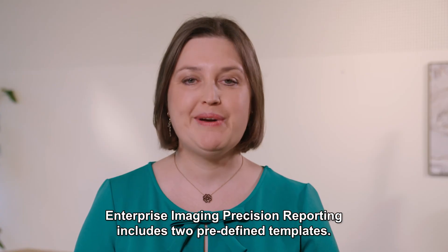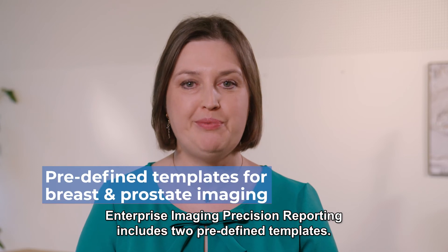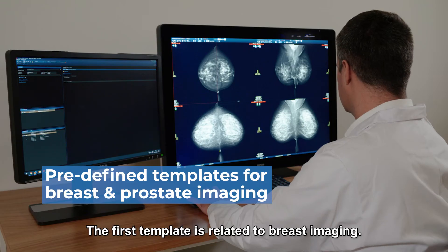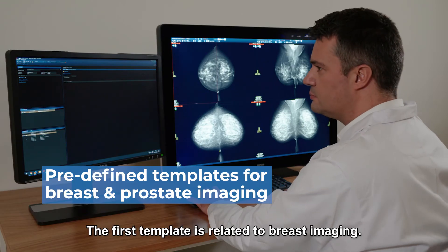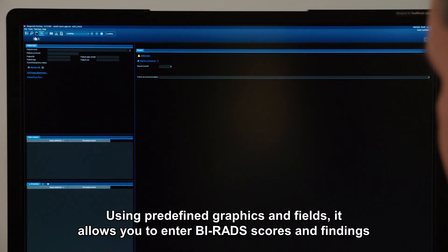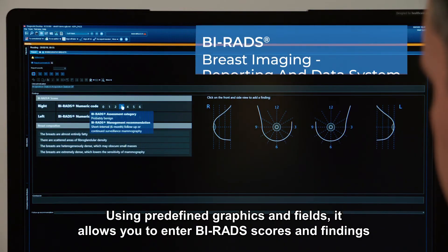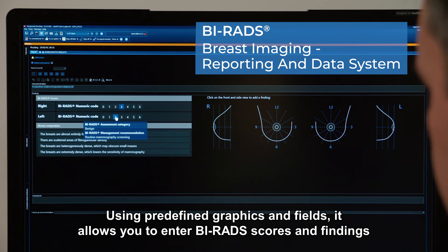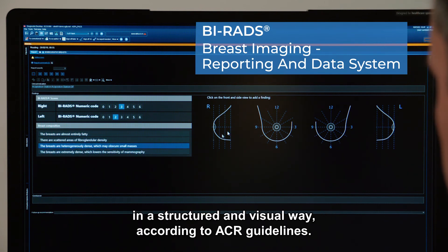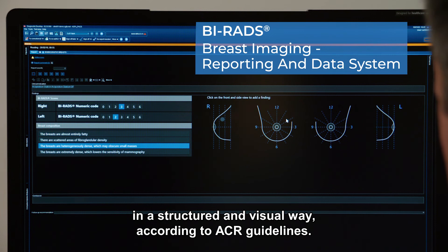Enterprise Imaging Precision Reporting includes two predefined templates. The first template is related to breast imaging. Using predefined graphics and fields, it allows you to enter BI-RADS scores and findings in a structured and visual way, according to ACR guidelines.